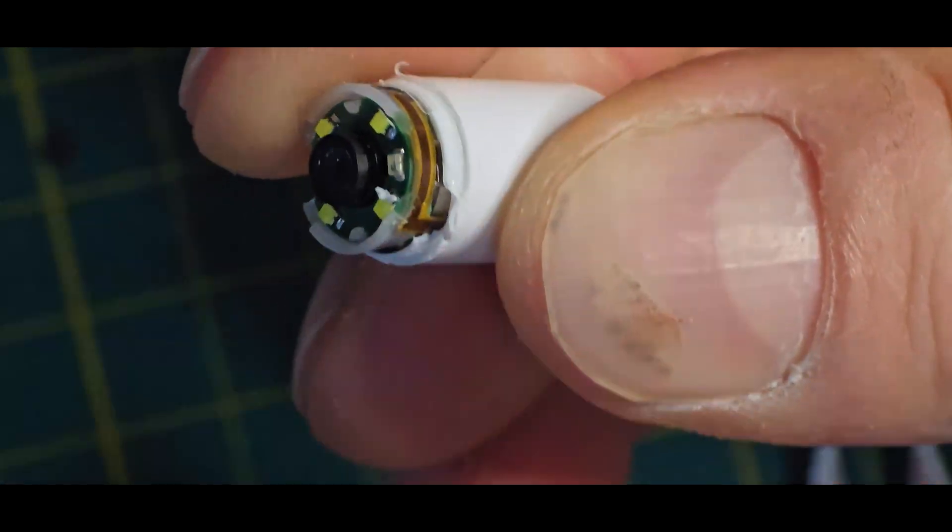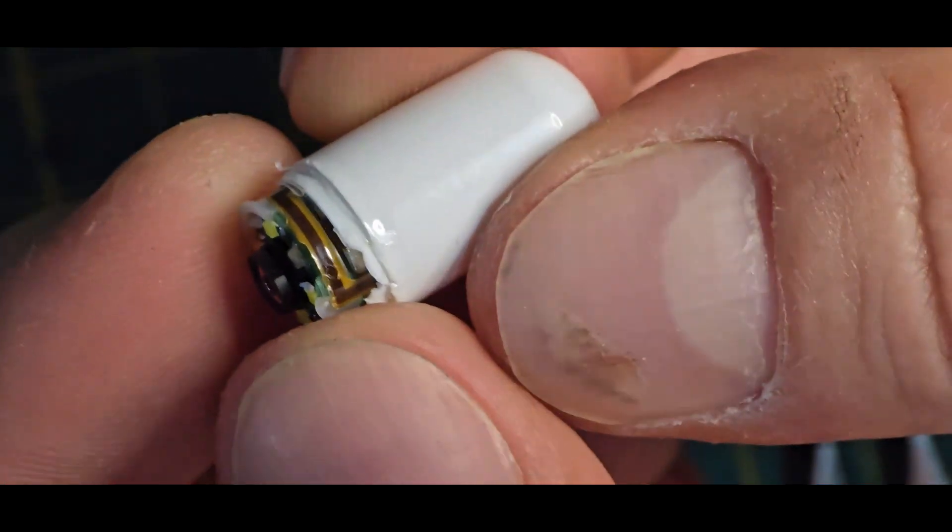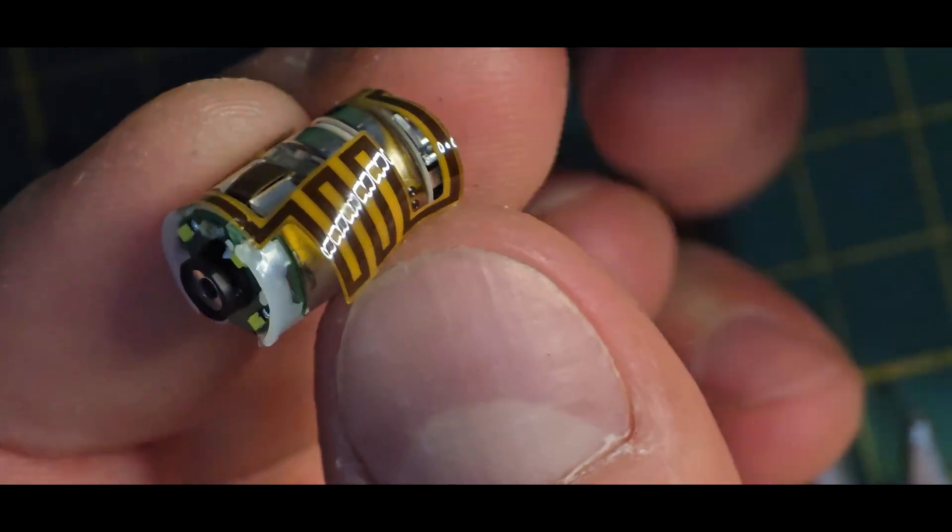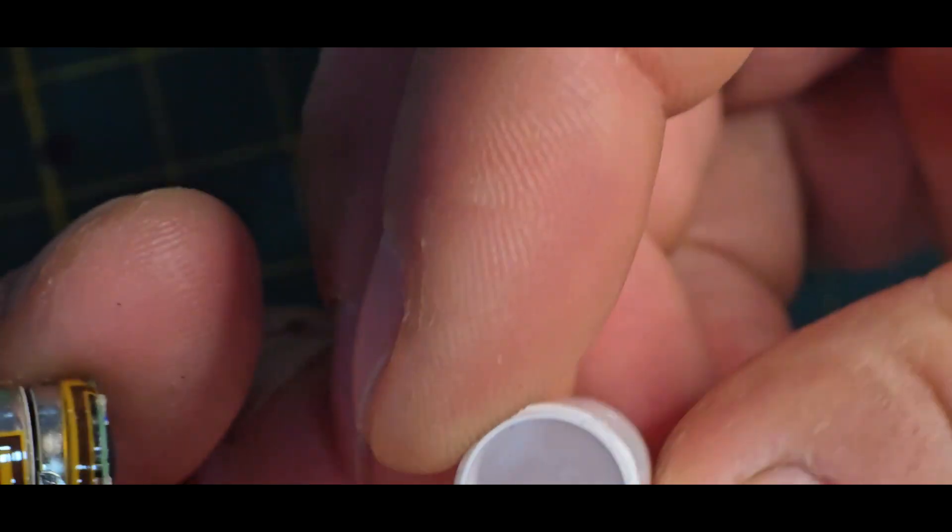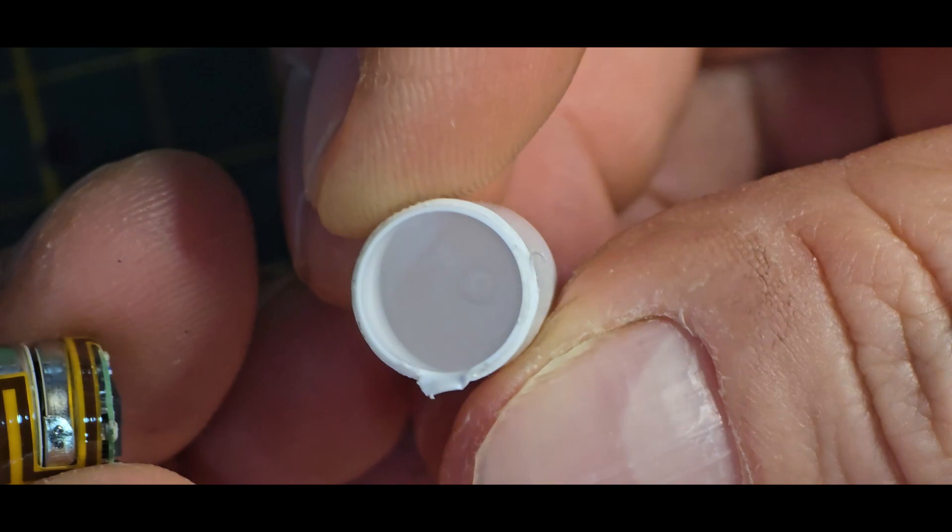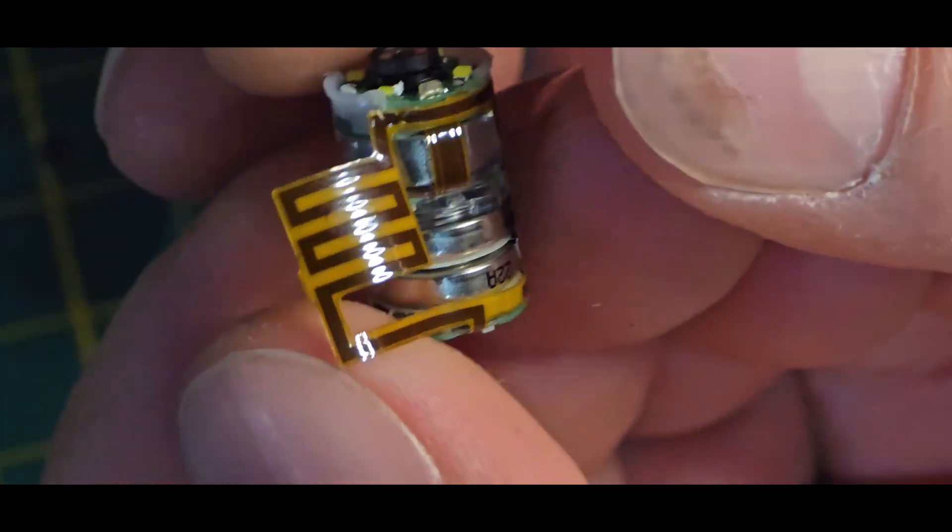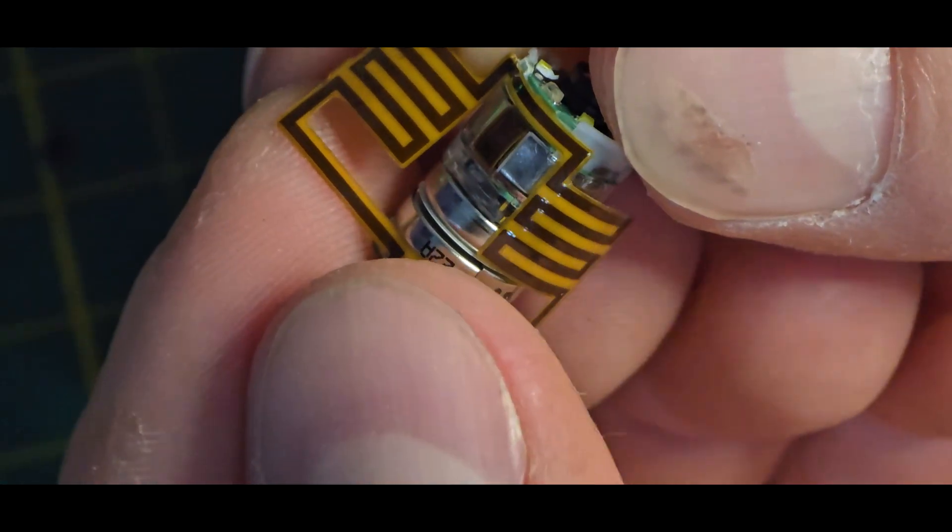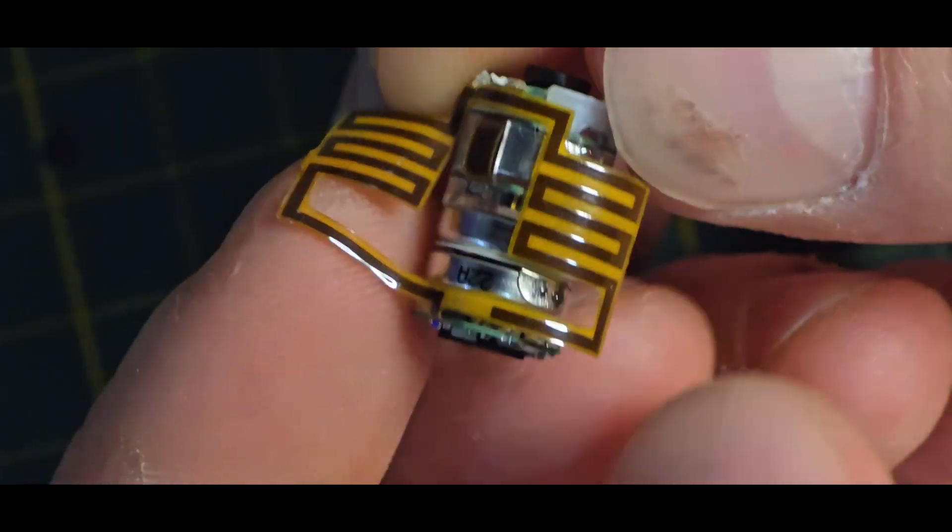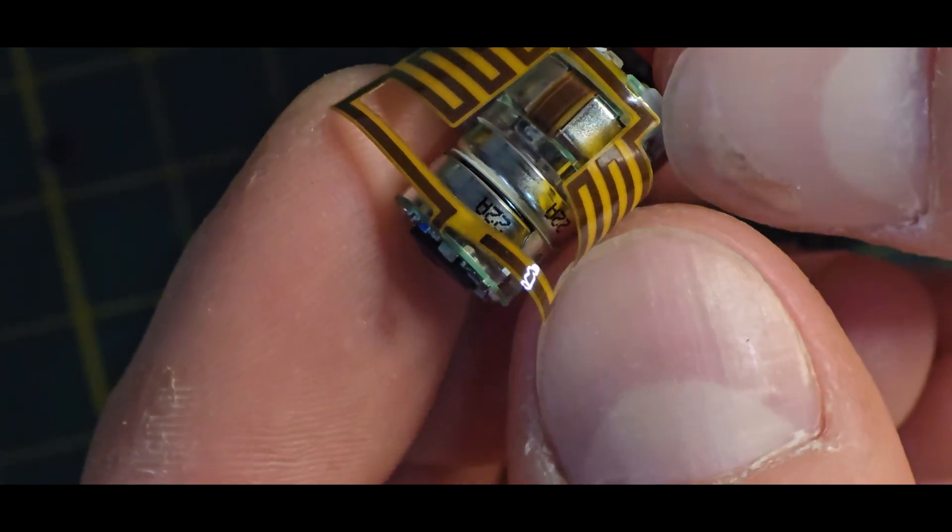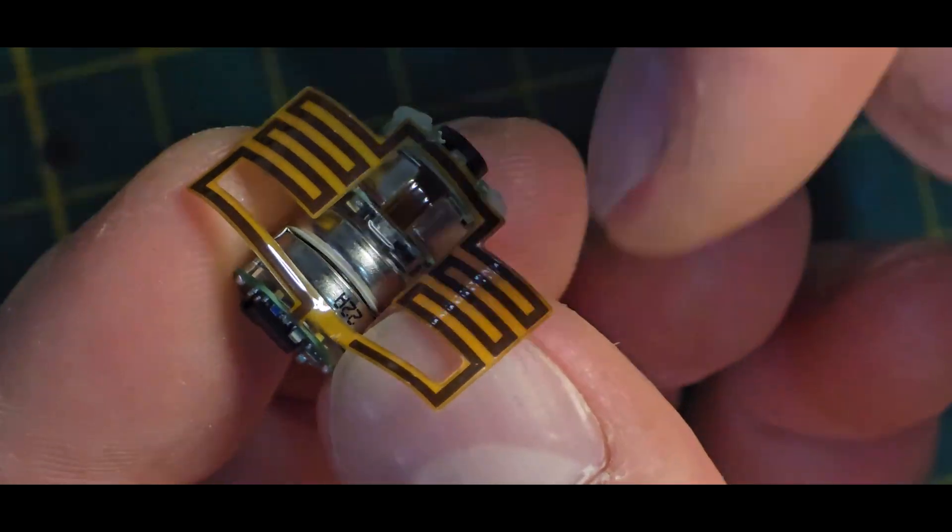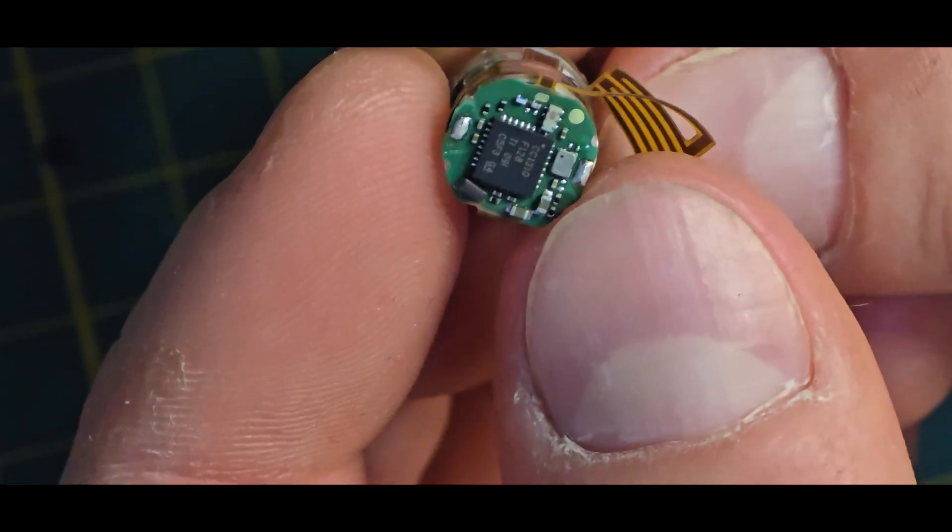So yeah that looks good. Okay so we can see a big flex cable all around. Let's also take a look inside this pill but it's just there. And yeah this flex cable really seems to be the antenna. Okay so it's two-way some special antenna. Okay it is one antenna that is just made to be long enough all around.